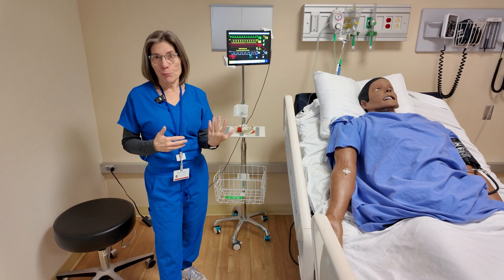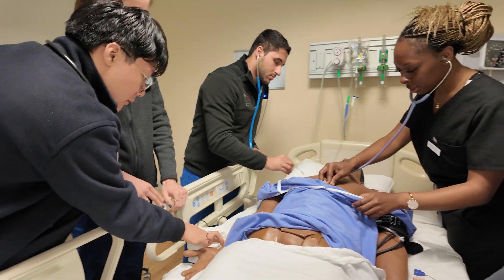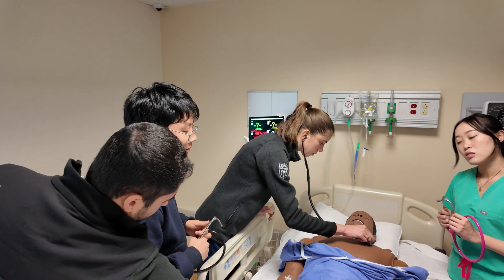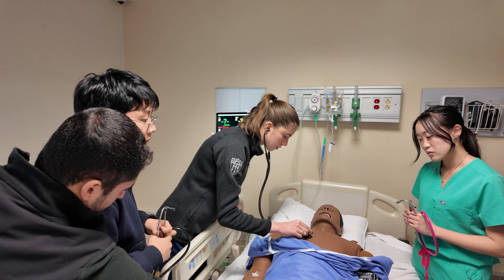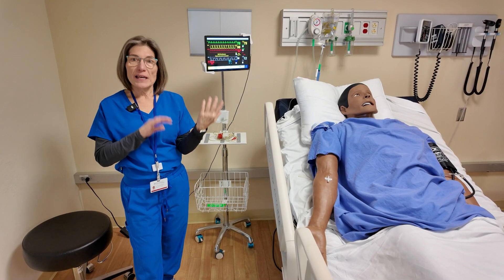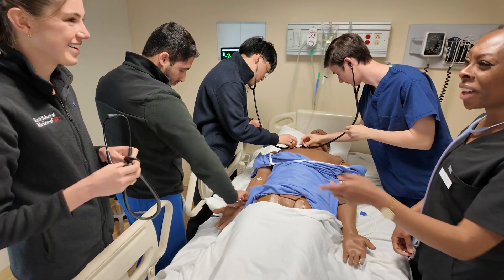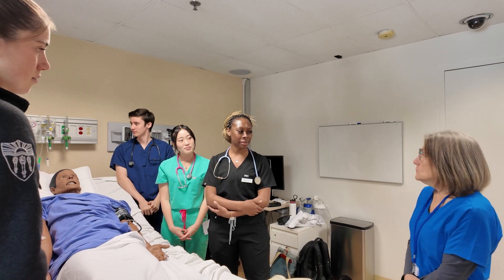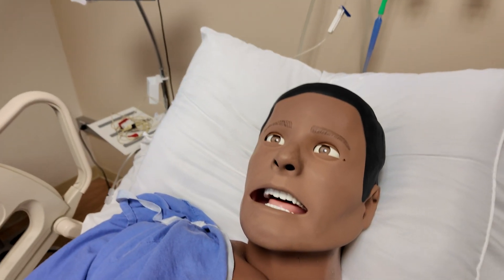Here I can bring them in and give them a congestive heart failure scenario. I can bring them in for advanced cardiac life support for a myocardial infarction. I can set all of that up for them in advance so they can benefit from learning how to diagnose and treat those emergency situations.